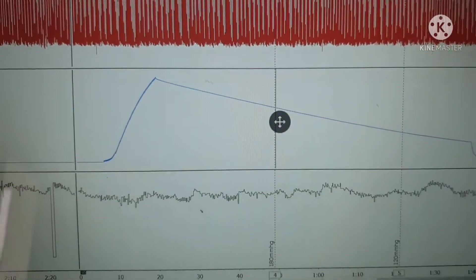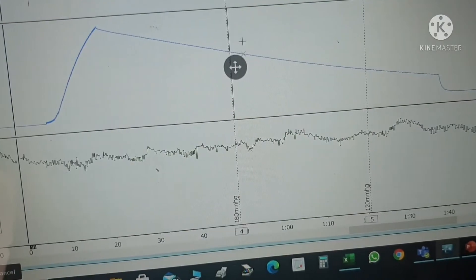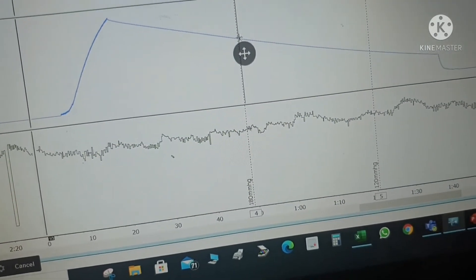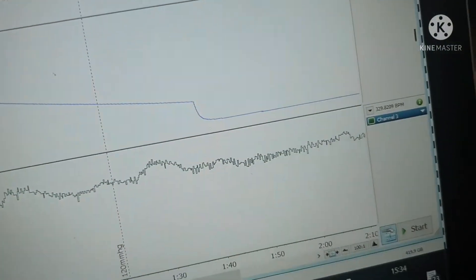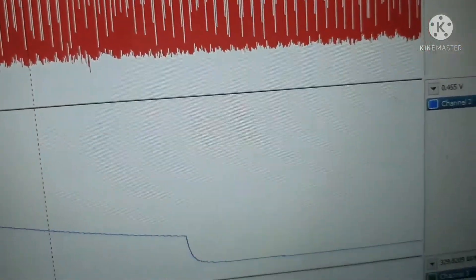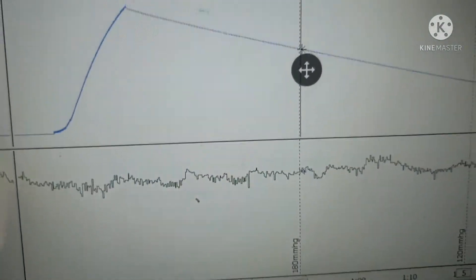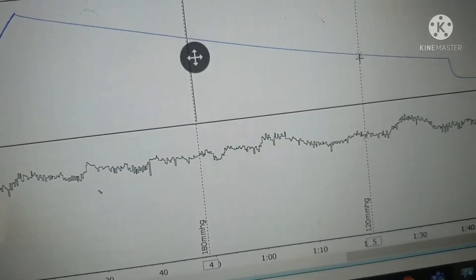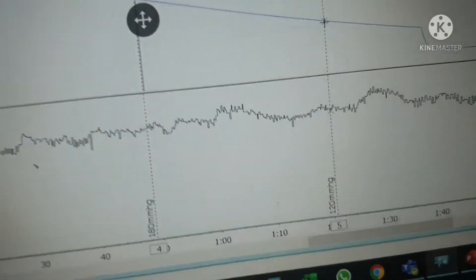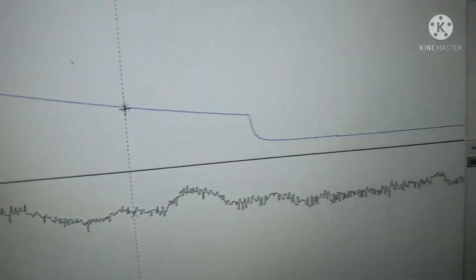Regarding calibration — once we recorded the data, if you place the cursor at the first comment which is 180 mmHg, the value in channel 2 is 0.455 volts. If you carry the cursor and place it on the second comment at 120 mmHg, that is recorded using the sphygmomanometer, it gives a different voltage value in channel 2.